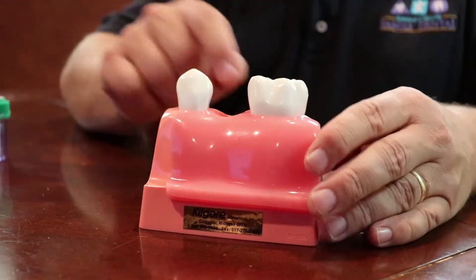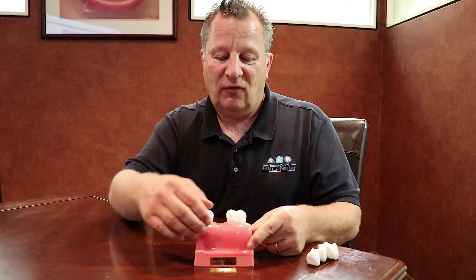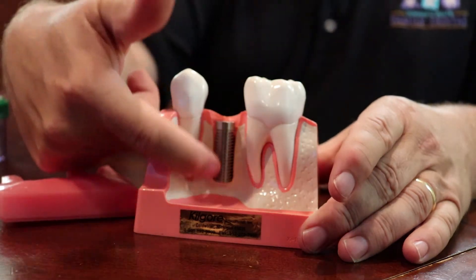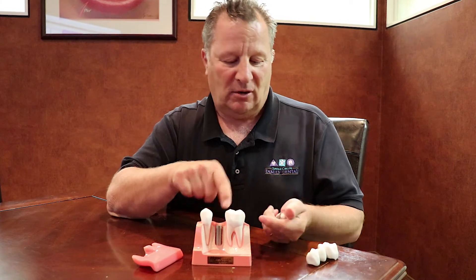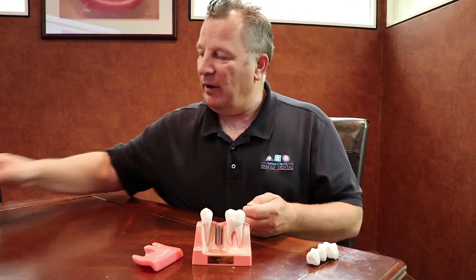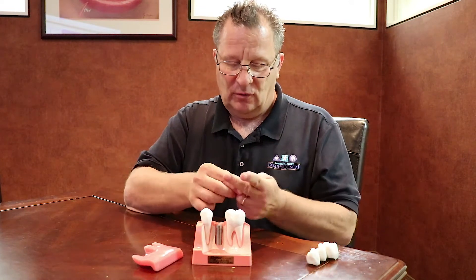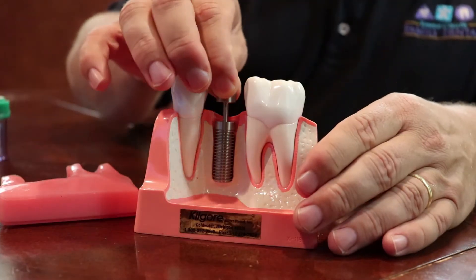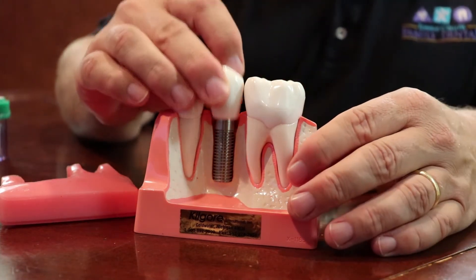If you look here, we have the top part of an implant. If we were to peel away the gum line — which we're not going to do in your mouth — it would look like this. You would have the titanium that goes all the way down and a top connecting part here, and it's that connecting part that we actually attach a post to.